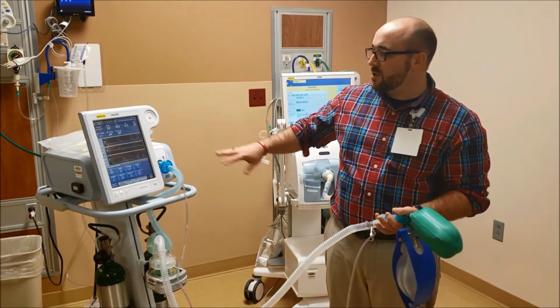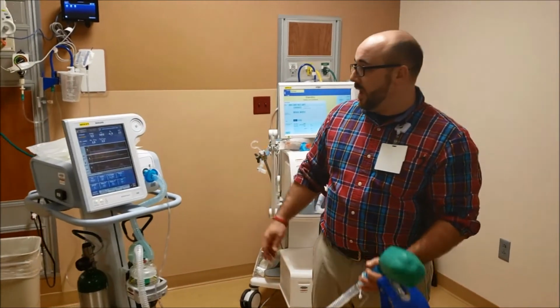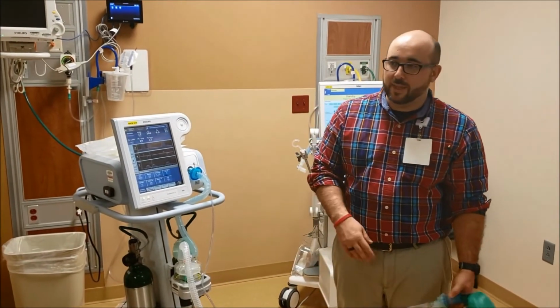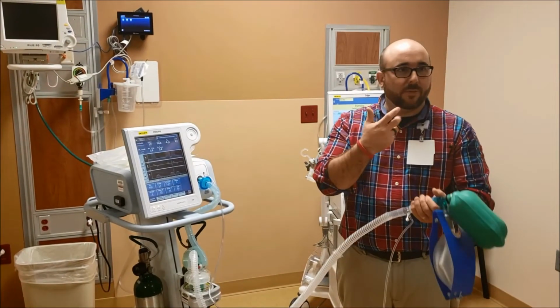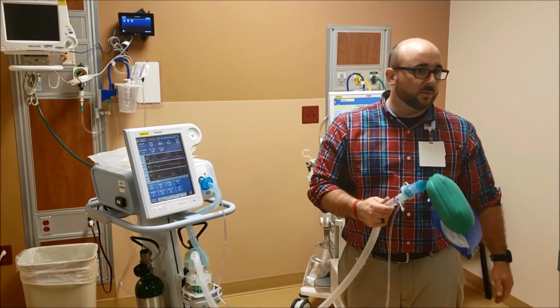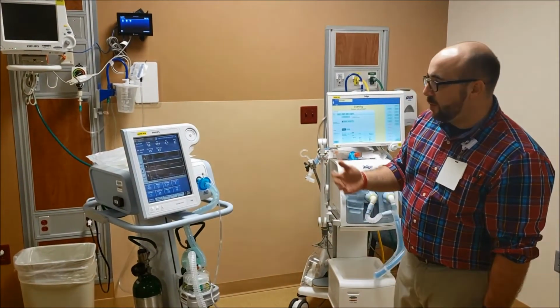But then we're showing this kind of as a this could be coming. But this would be the one, and then the great thing about it is that they bring them back and say, oh, they're extubated, let's get a BiPAP. Then you just take this off and stick a BiPAP mask on it. So it can be used either way. So you're not setting one up. Now that doesn't happen a lot, but it's nice to have that one type of machine.